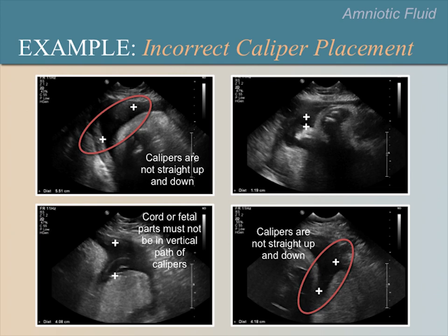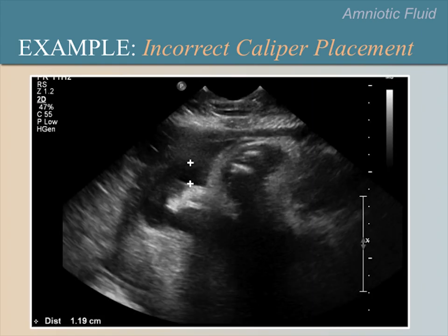Let's study the upper-right image more closely. We have enlarged the image. Look just anterior to the top caliper and you will see a hazy or fuzzy cloud that blurs the true edge of the uterus. This is called a near-field artifact, and is not really there. It can be seen in the near-fields of the image because the ultrasound echoes bounce and scatter in the body wall of the patient. This type of artifact occurs more often in heavier patients. Sometimes turning down the near-field gain will reduce this artifact.